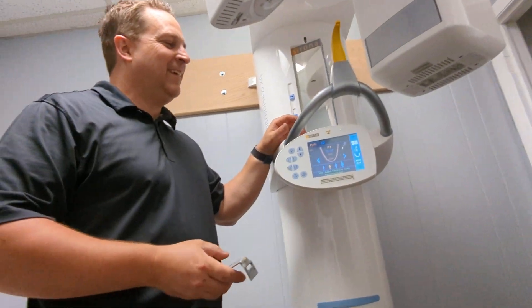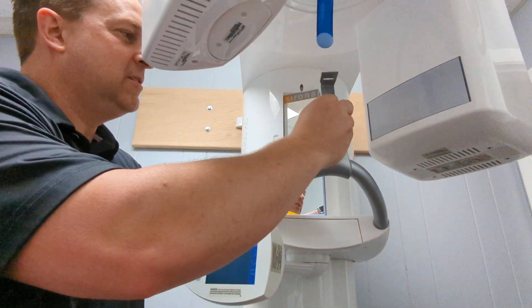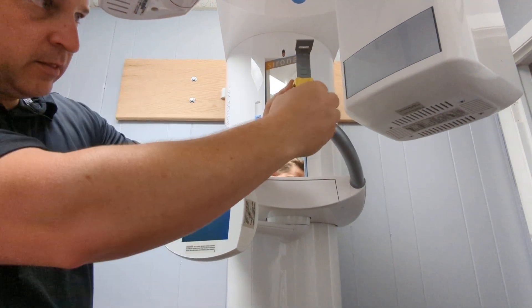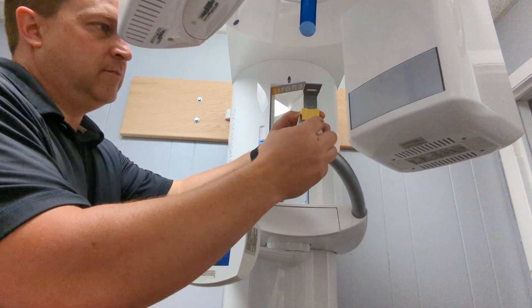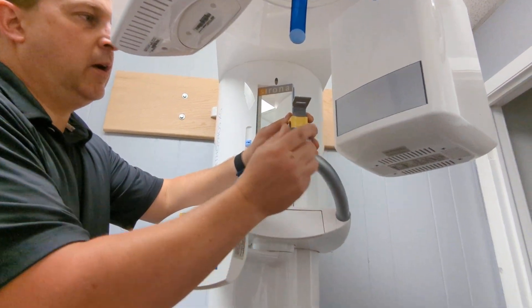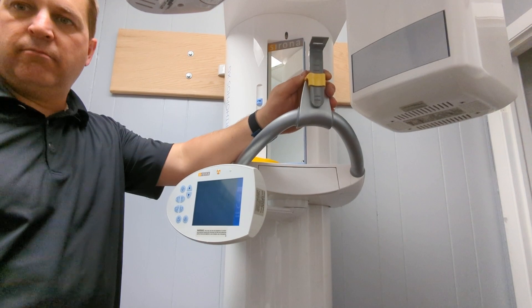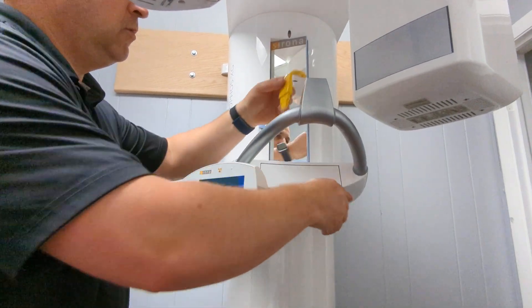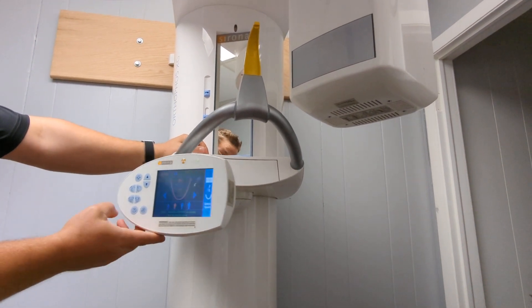For 3D you can put those little things on it as well. There are so many accessories — it's for upper/lower situations. If you want to do more of a maxillary shot, you can have them lower in the bite stick. For mandible shots you can have them higher in the bite stick. Technically you could just use that for all of them and just raise or lower — yep, that's exactly right.